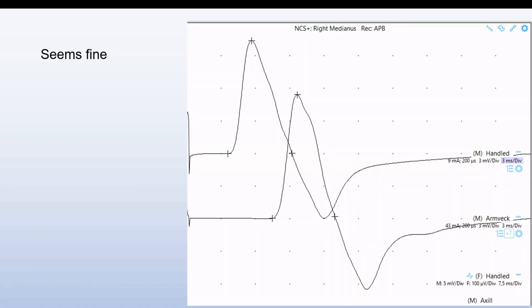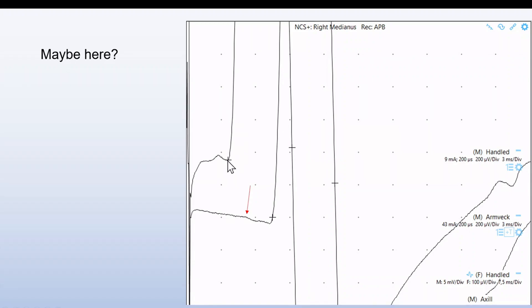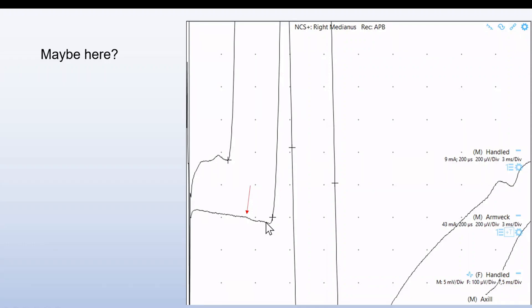Here is a routine recording where we have the distal and the proximal responses with the automatically set cursors. If we increase the gain, we see the pre-motor potential here. But here is the setting for the cursor at the place where the signal is turning in the negative direction. And here we may have uncertainties because there is always or often some small signals in the early phase. Is it going to be set here, or should it be here, or where?